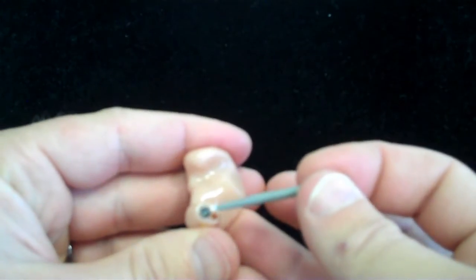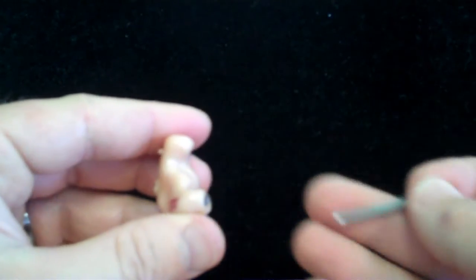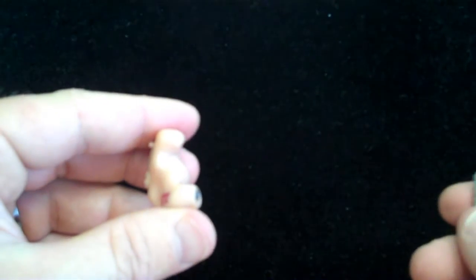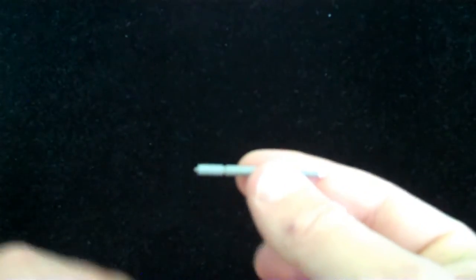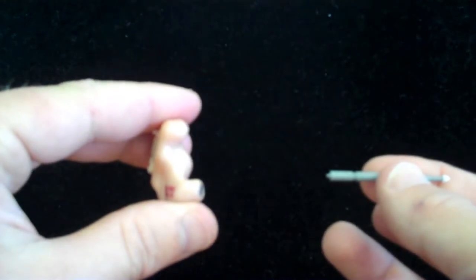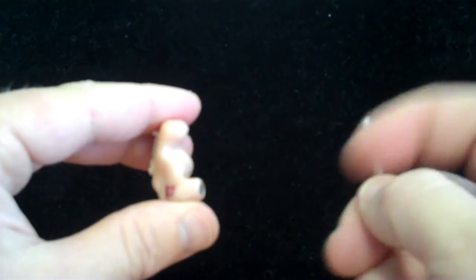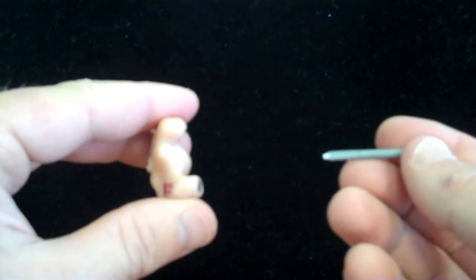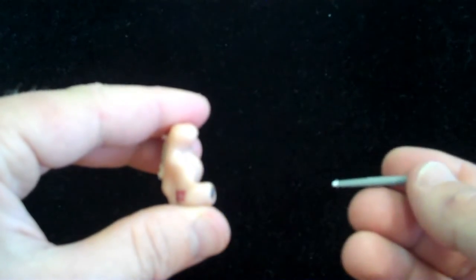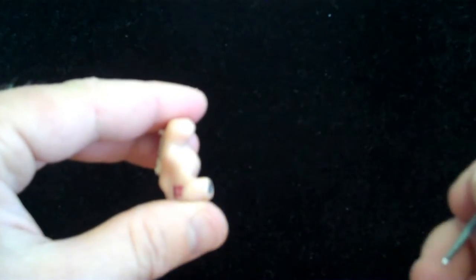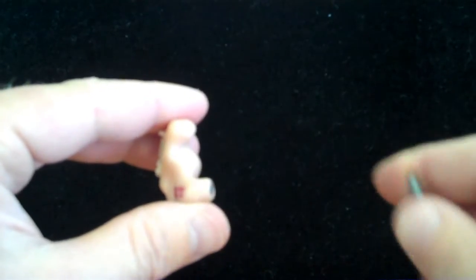Now, this particular one is not the correct wax basket, but I'm showing you for demonstration purposes. If it was, we would take the same tool here, poke, pull, to remove the old filter, turn it around, push, and leave the new filter in the custom in the ear device as well.